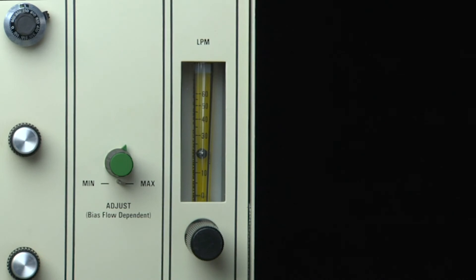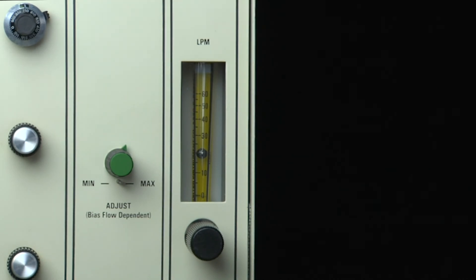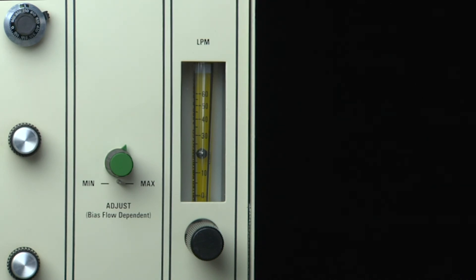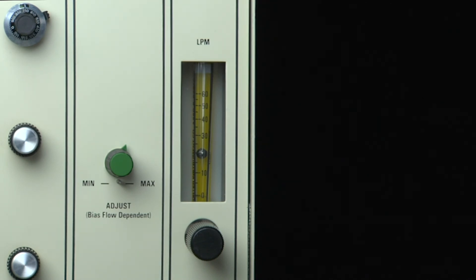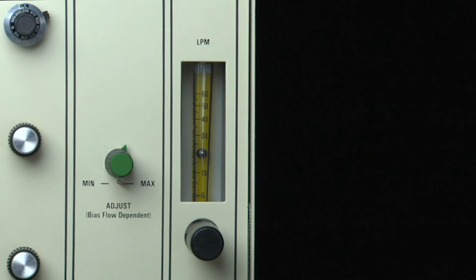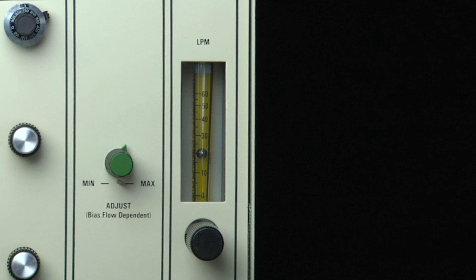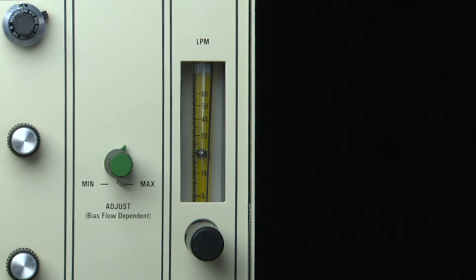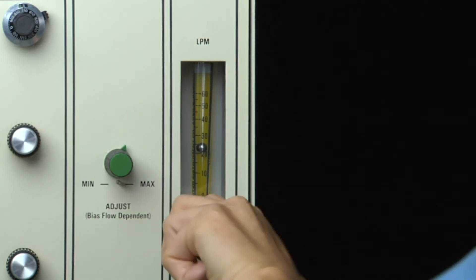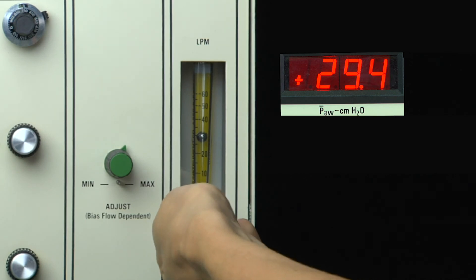The first control that is set when using the ventilator is bias flow. This sets the continuous gas flow through the system and is used to establish the mean airway pressure. Although the ventilator has a maximum flow rate of 60 liters per minute, typical applications of the 3100B use flow rates of only 25 to 40 liters per minute. Since the mean airway pressure is flow-dependent, adjustments to the flow rate will affect the mean airway pressure range.